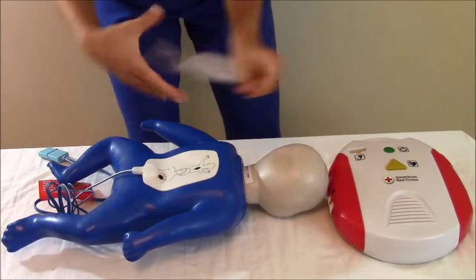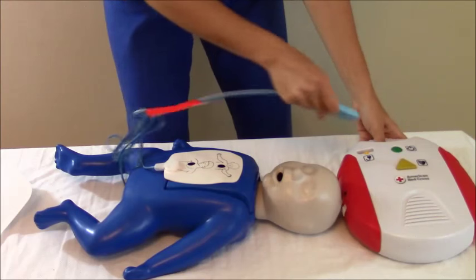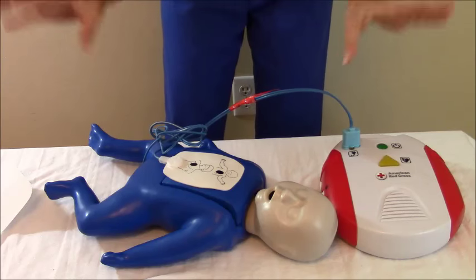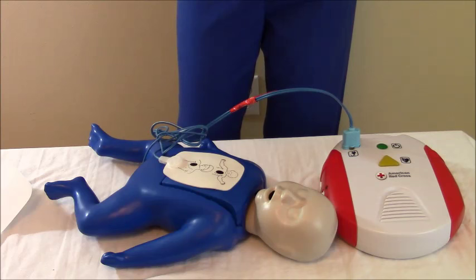Then flip them over again and plug your connector into your AED. While it's analyzing, do not touch the patient because it could cause it to read something it doesn't have. The machine will advise if a shock is needed.